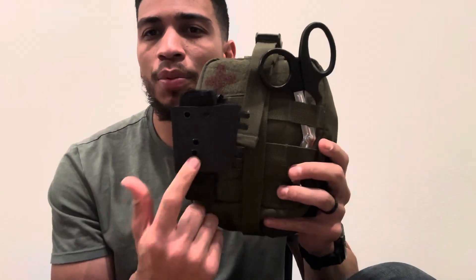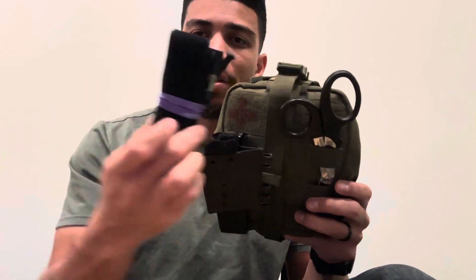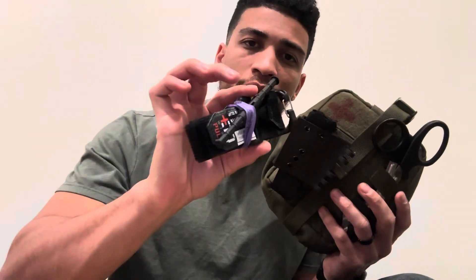But what I wanted to talk with you about was the tourniquet that I used. This tourniquet is not in the bag — it's right here. I brought it with me to the wedding. The bag stayed underneath the plane when it got checked, and I kept the entire bag in the hotel room the whole time. However, this tourniquet was in my pocket everywhere on property at the resort. No matter where it was at the wedding, I still had this on me.